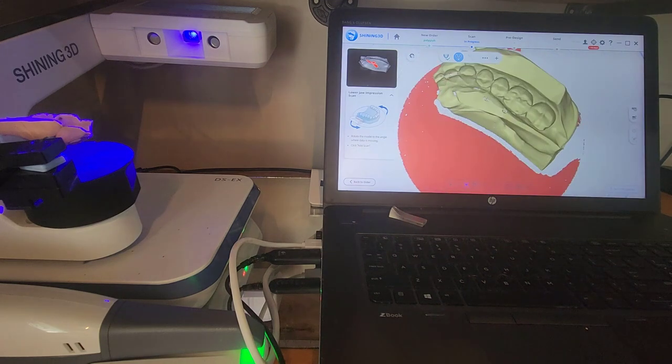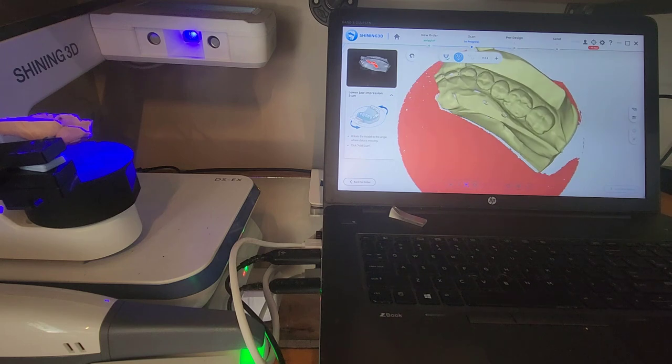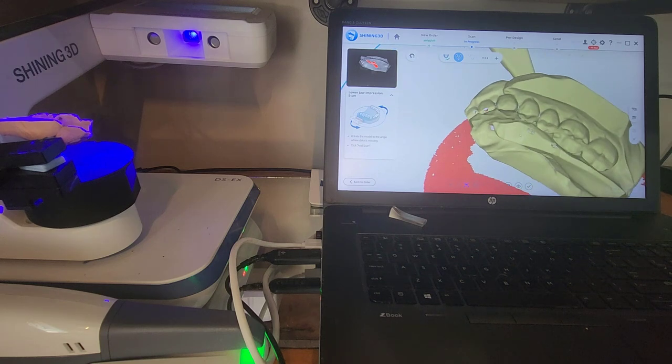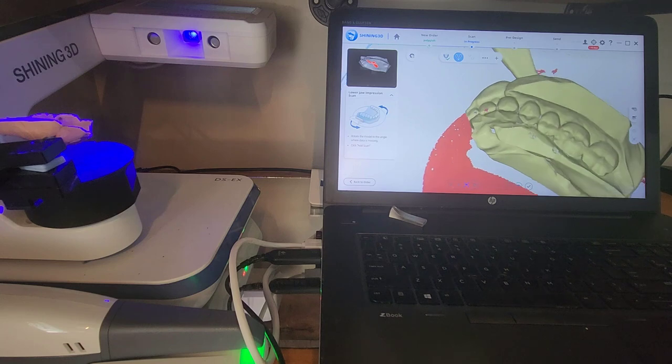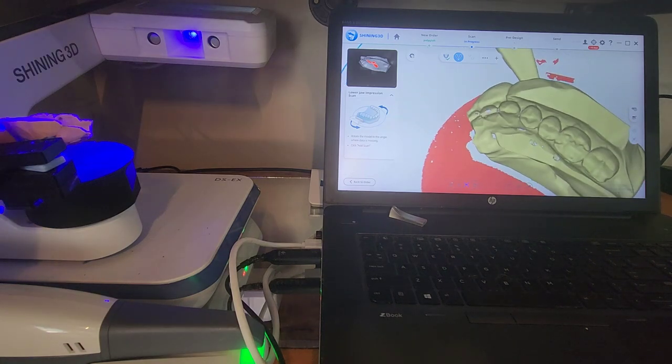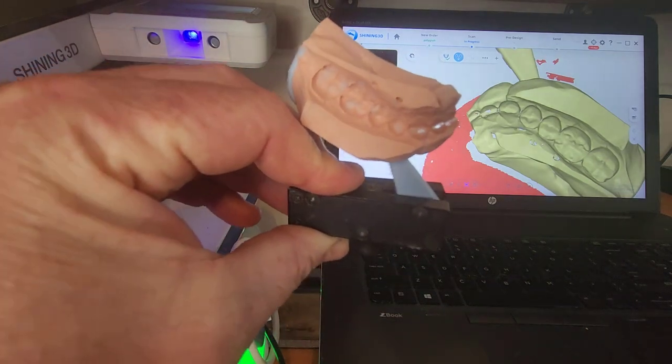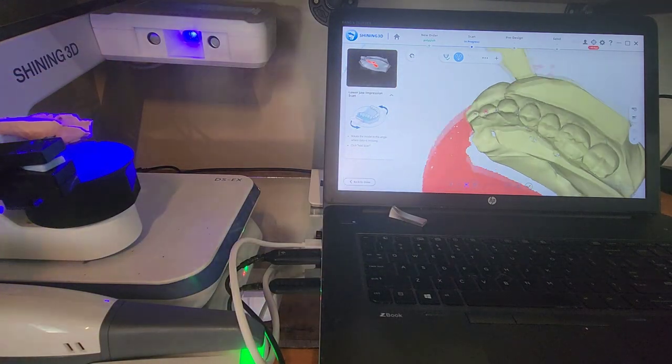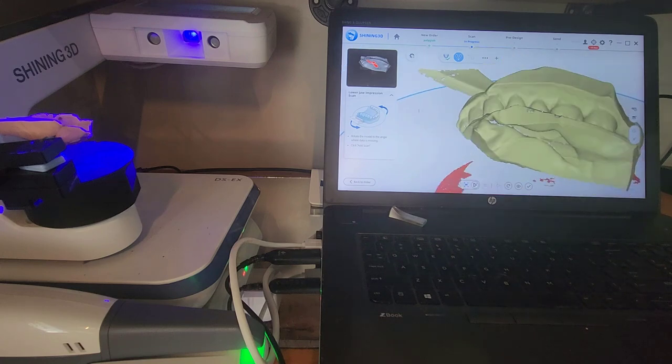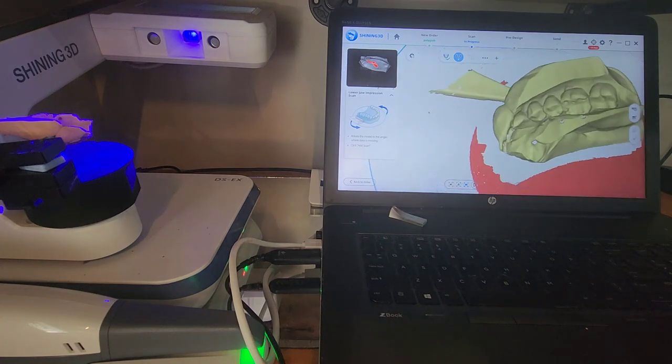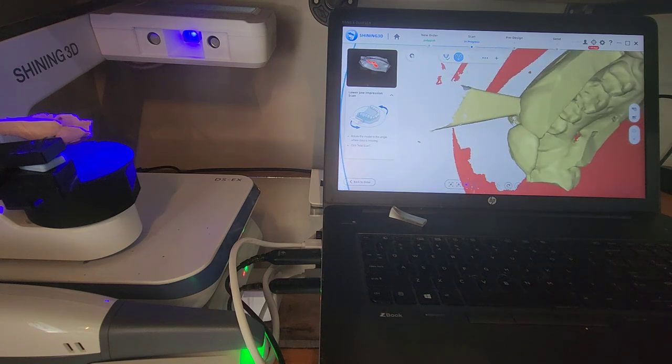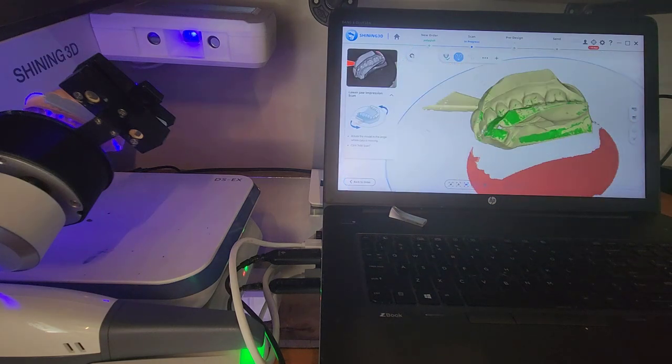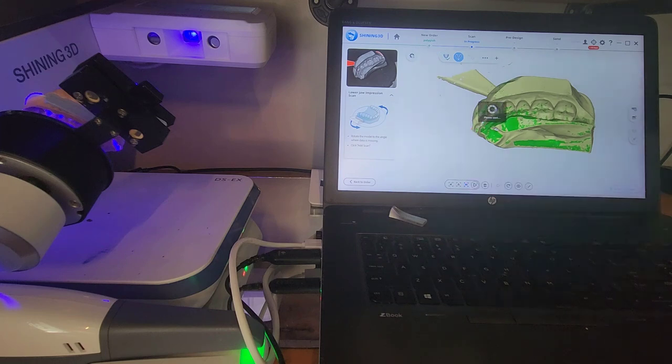And now just to show this, sometimes you'll miss areas on anterior teeth. Usually that's because sometimes you can have so much angulation to the teeth that there's just no way for the camera to look in there. Now that almost never happens on posteriors. It's usually on incisors. It's actually missing a little bit of data here, but I actually know the reason for that is more so because, do you see the translucency through there? That's where that patient's bite is so heavy. So it really wouldn't help if I took additional scans. I'm not going to pick that up. So the software's just going to fill in that hole, and that would be fine. But just to show it, let's pretend. I'll orient to look into this area, and I'm going to hit add scan. And the software spins around. It takes another image, and that green data is what was added there. So this looks good. I'll complete this.